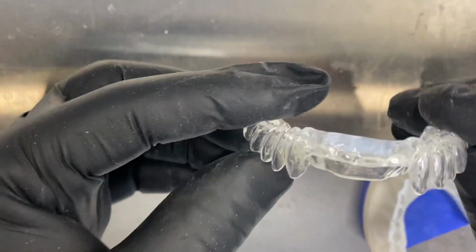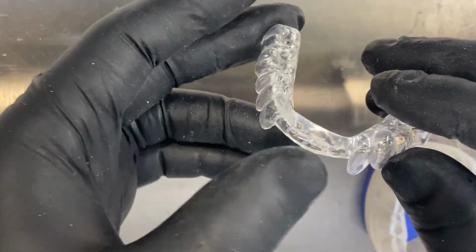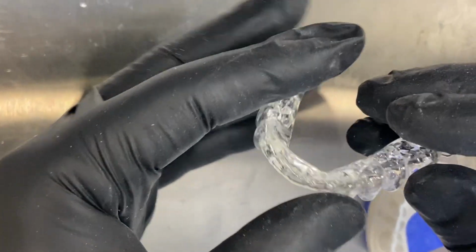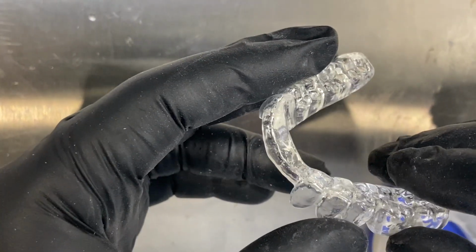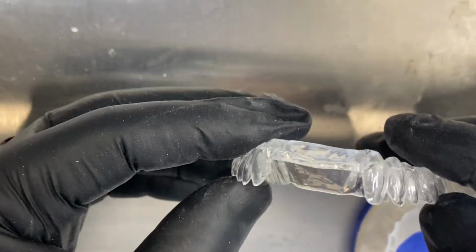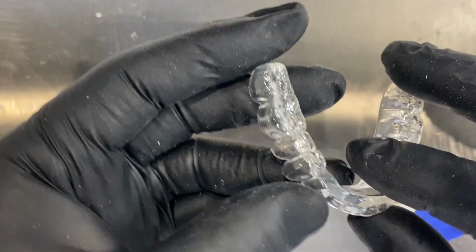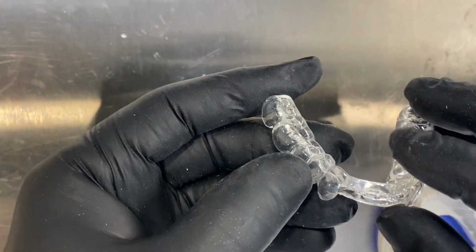The other material, which is a nylon, has the limitation that it cannot be relined. It's not compatible with acrylic, so they don't mix together. The flexibility of the other material will make the acrylic flake off and it's not going to work. So it's important to understand the limitations of the appliances so your prescription will be more precise.